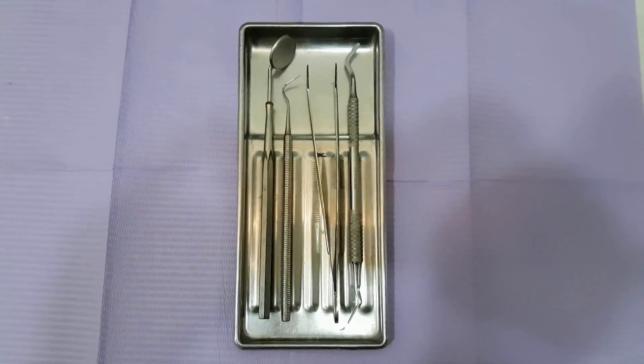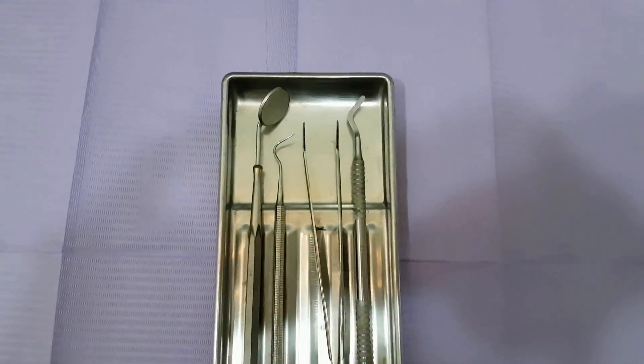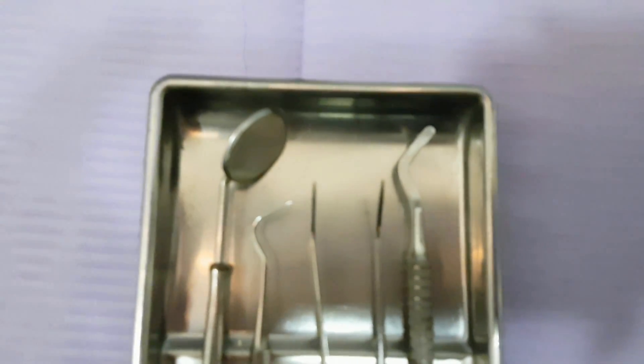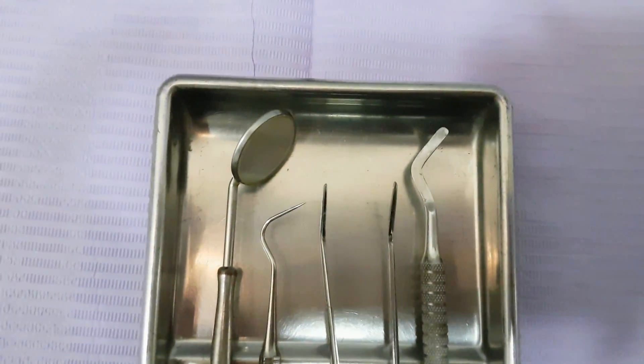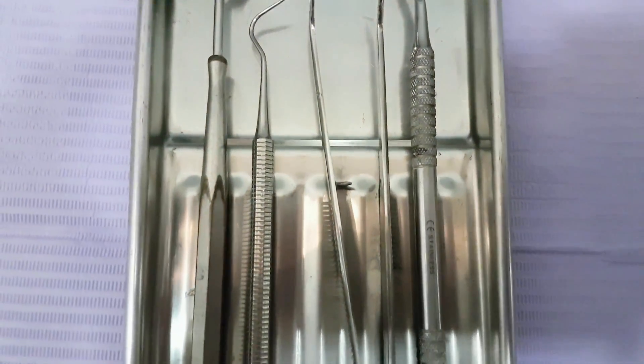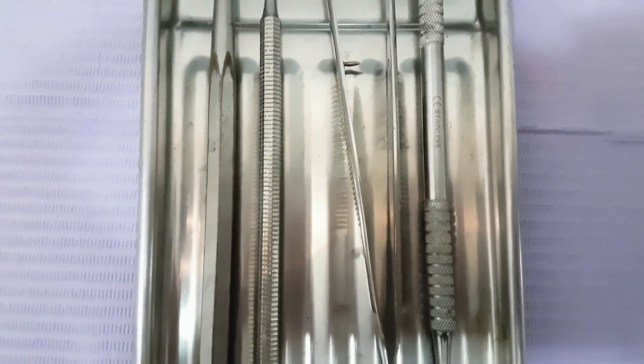Hello everyone! In this video I want to talk to you about the basic instruments the dentist uses. They are the dentist mirror, the dentist explorer and tweezers. And also I am going to present to you the so-called plastic instrument.